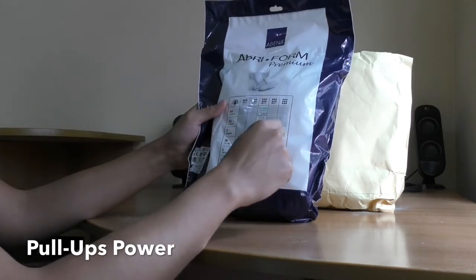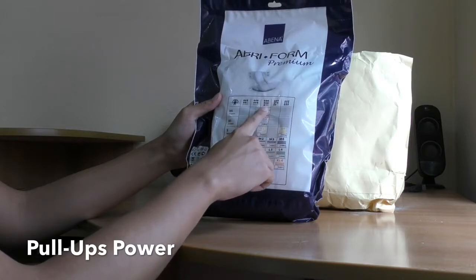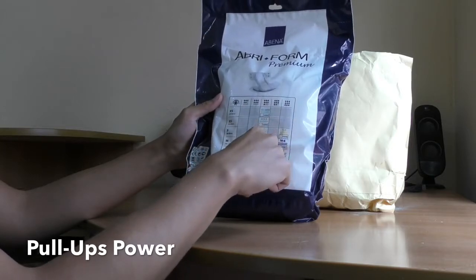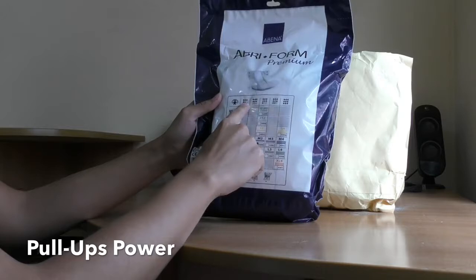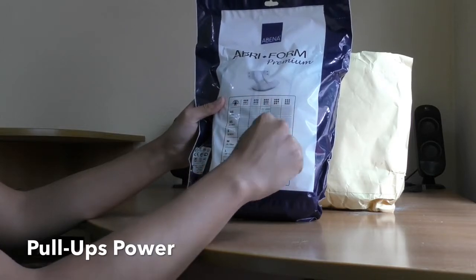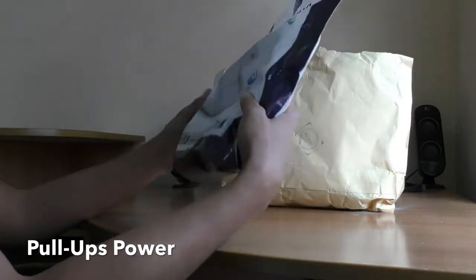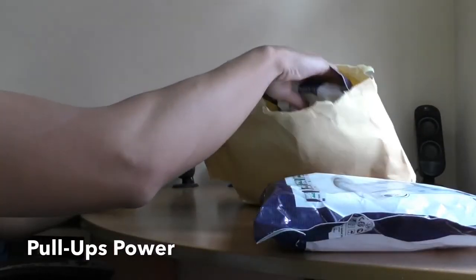They have an indicator of the absorbance here. This is level 7, seven drops.